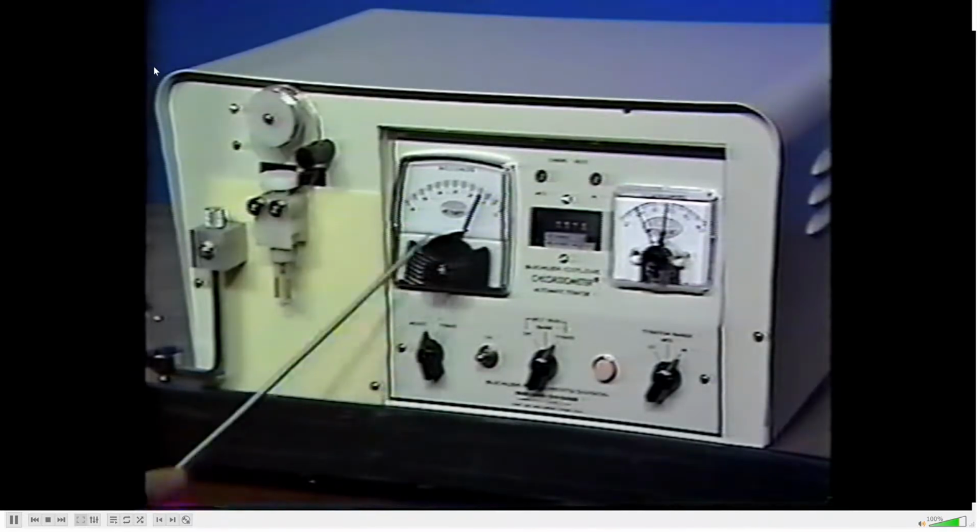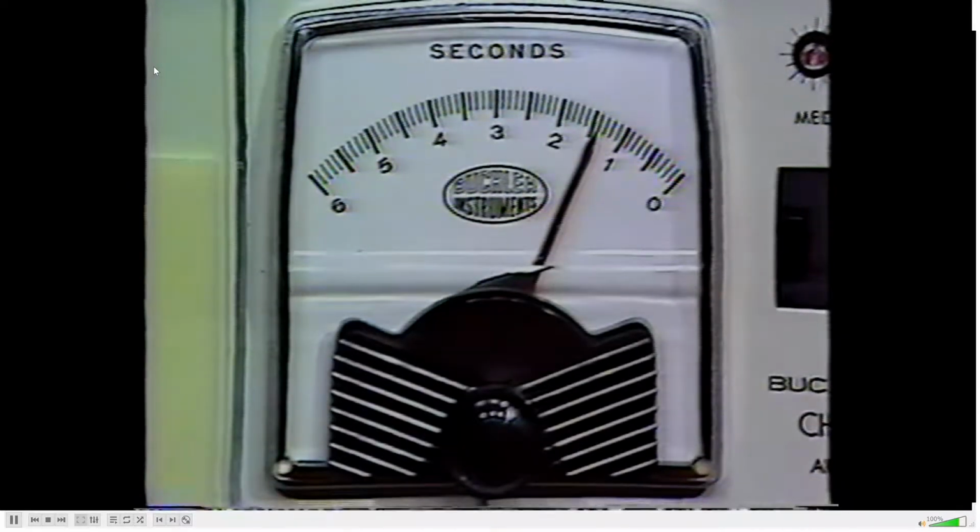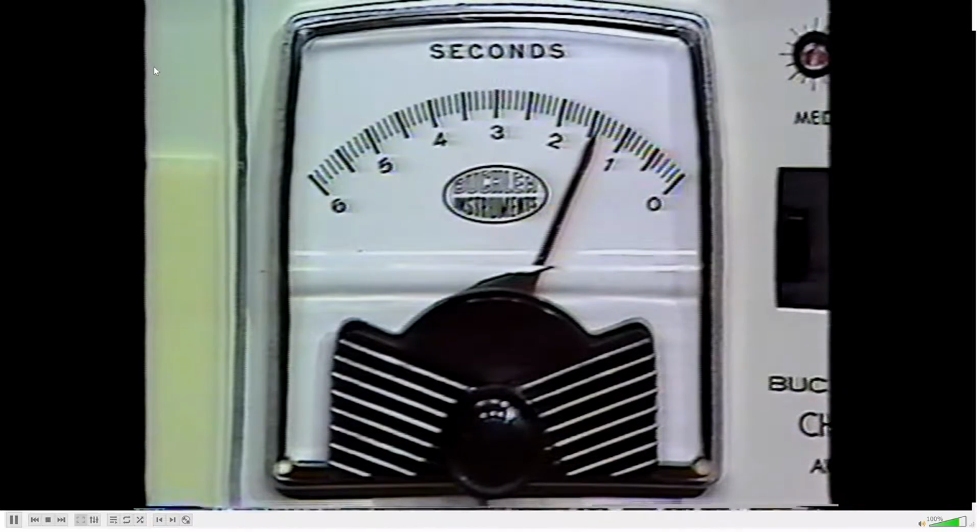The blank timer cues the instrument to begin direct readout only after the blank titration time has been subtracted for each standard and unknown titration. This delay circuit is activated immediately on cue to titrate and will start the direct readout circuit only after it has reached the zero position.